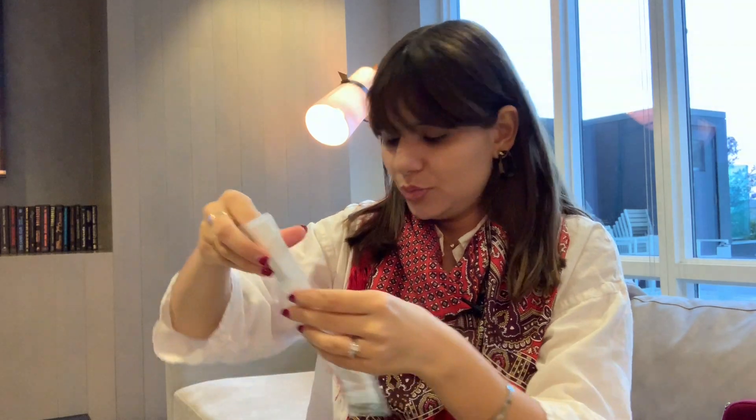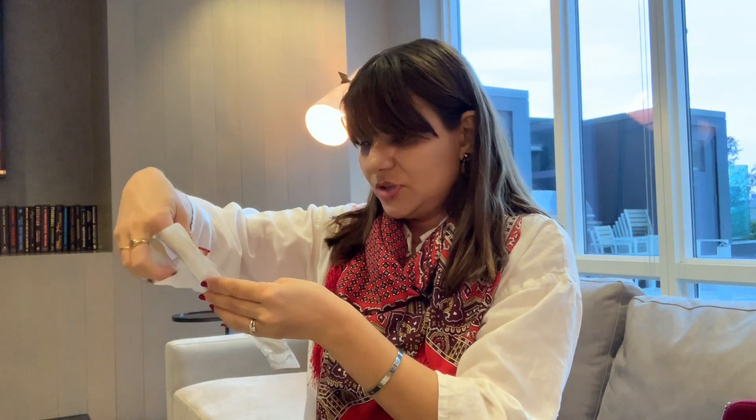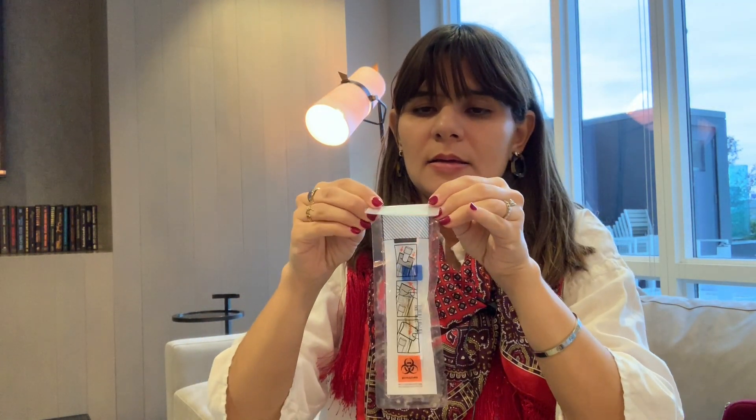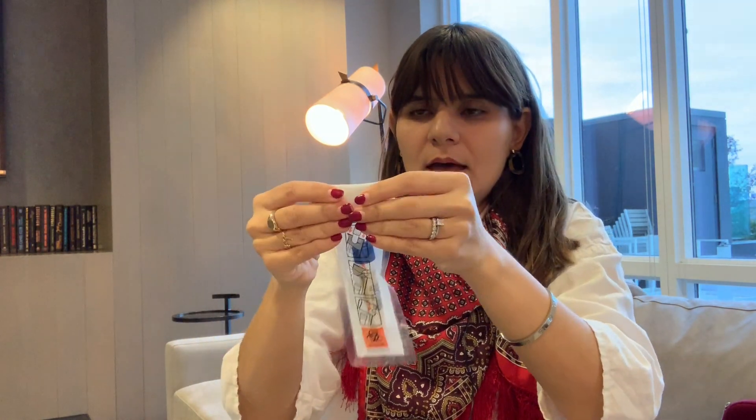I think now I'm ready to go. So you have this little hole here — you put your tube in this little hole, which way upward. Then you lift off this part and you put this sticky part to this stripe section like this. See, that's it.